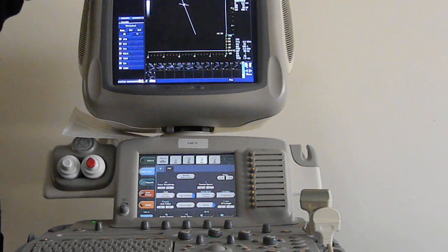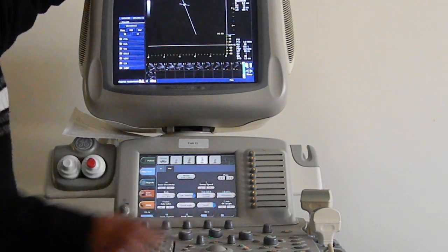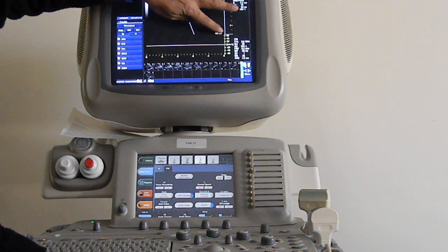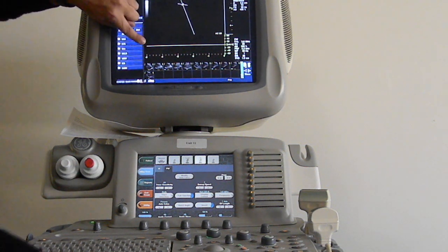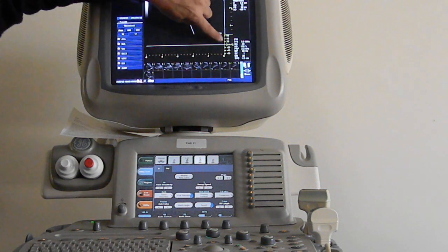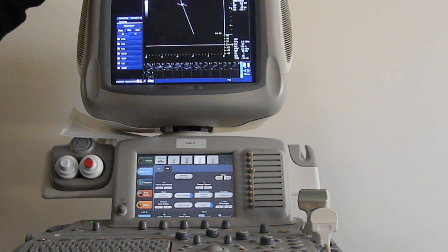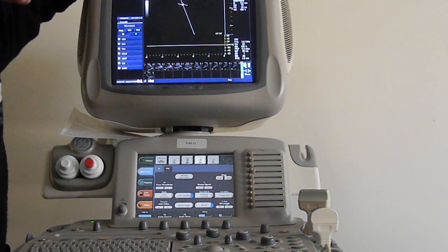And this graph here, you see this line here, that's what we refer to as the baseline. That means it's going to be a velocity of 0. And if something is 0, that's because it's not moving. Like your car's velocity right now should be 0, if you still want it to be parked in the parking lot.